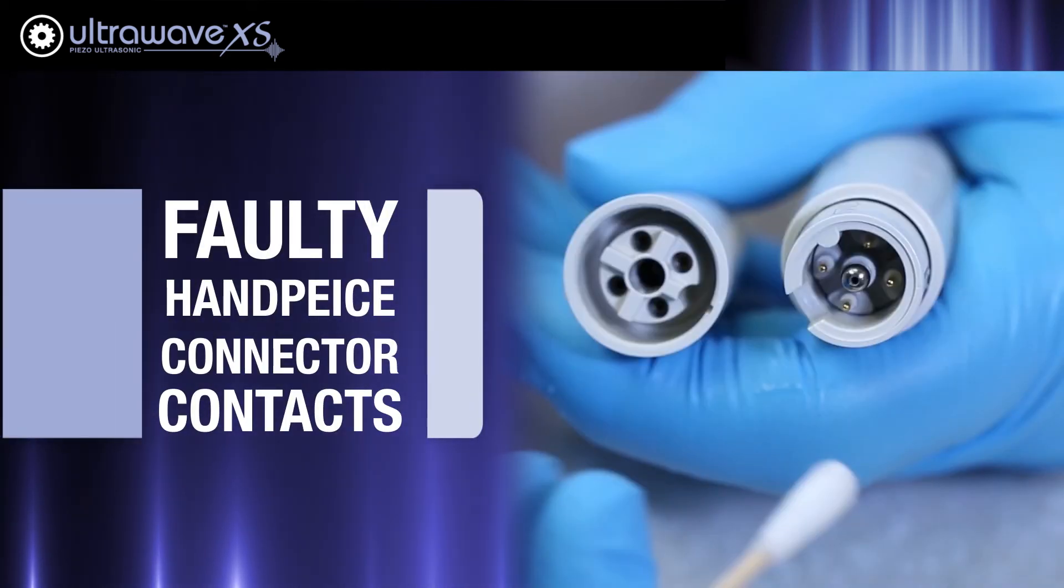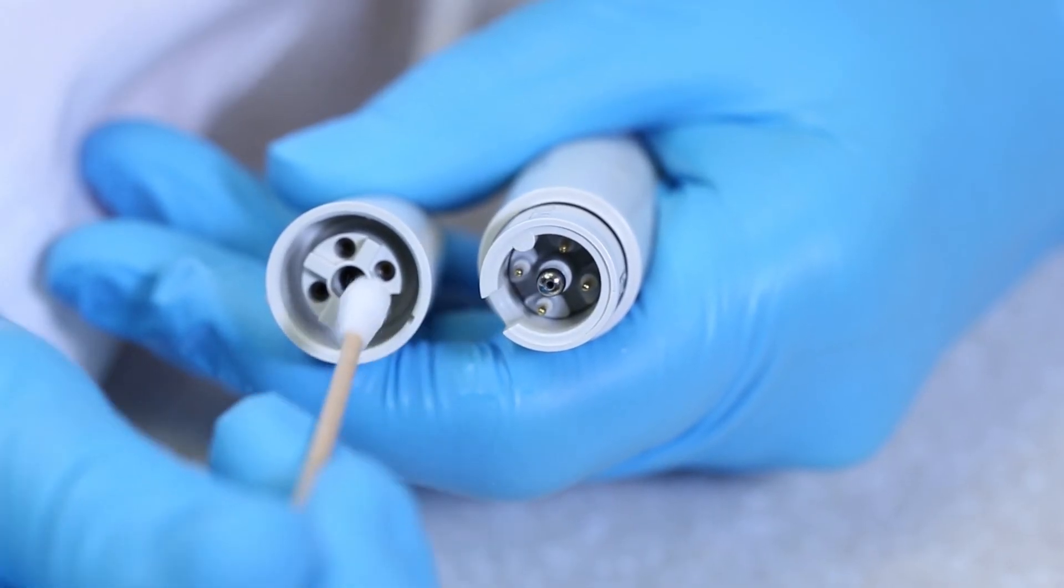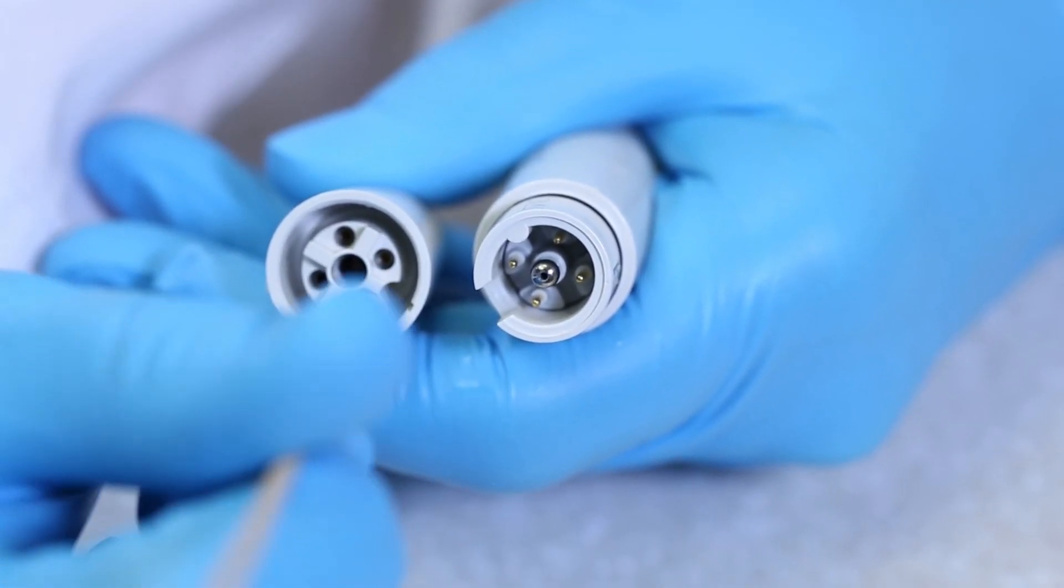Another possible cause for poor or no vibration is there could be faulty handpiece connector contacts. Use a Q-tip to clean the connection between the cord and the handpiece contacts.